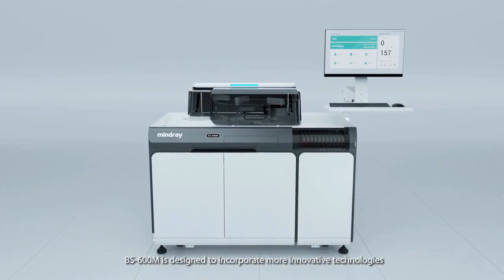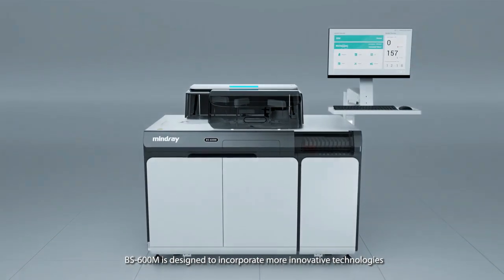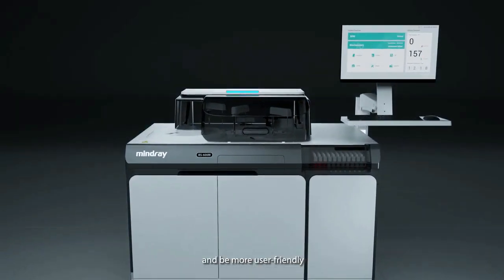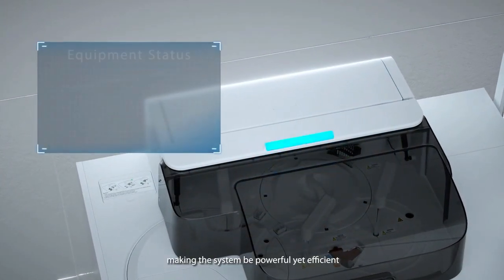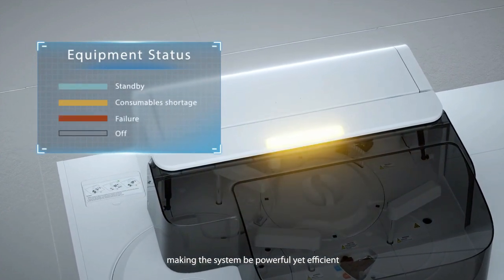BS 600M is designed to incorporate more innovative technologies and be more user-friendly, making the system powerful yet efficient.